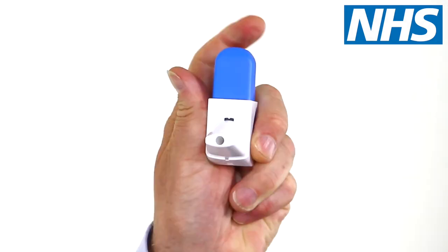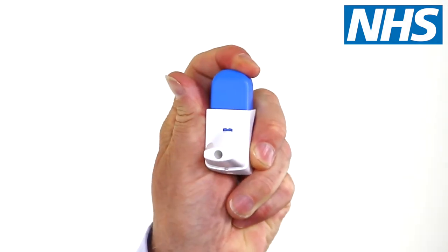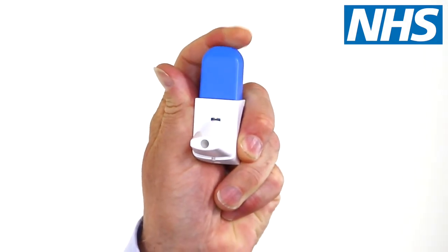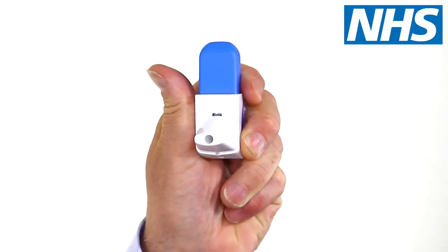Hold the easyhaler upright and press the top down until you hear a click. Let go and allow it to click back again.